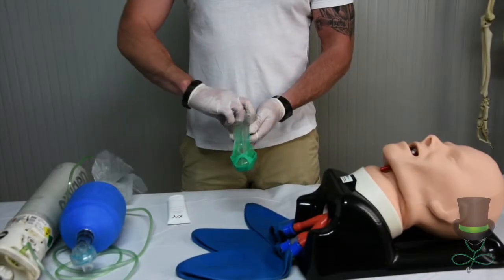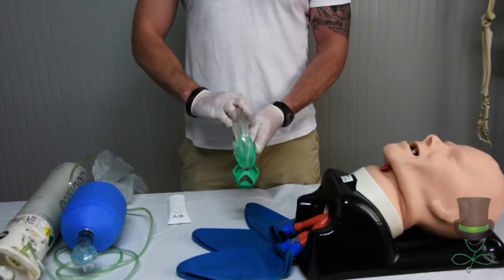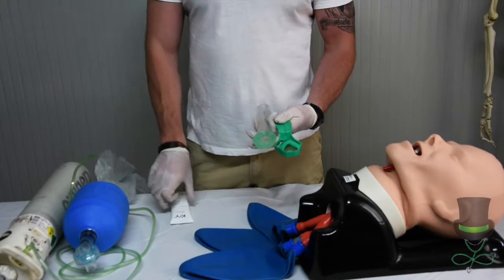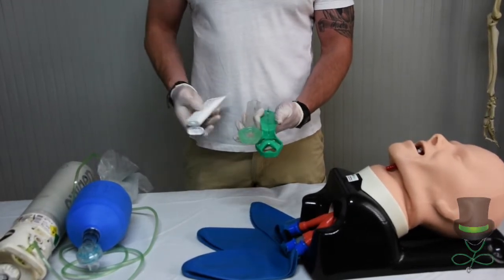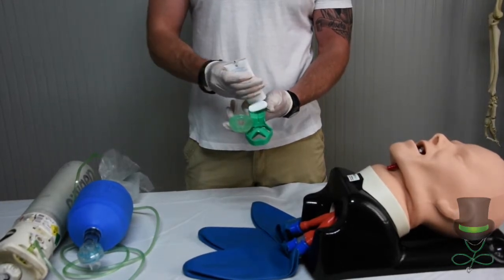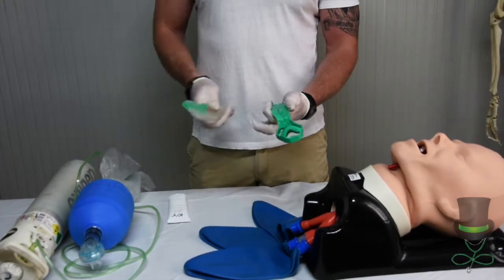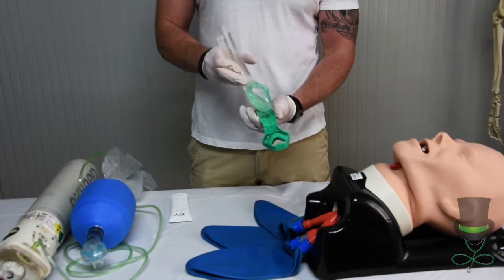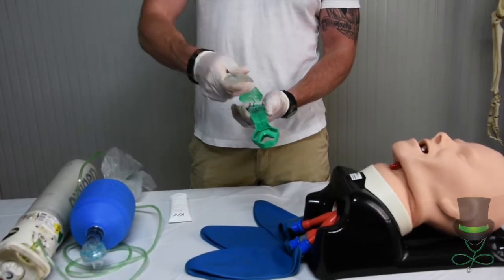When the LMA is removed from its protective packaging, remove the LMA from the cradle. Place the water-based lubricant into the port provided on the cradle of the LMA, and then proceed to lubricate the mask on all sides including the tip.